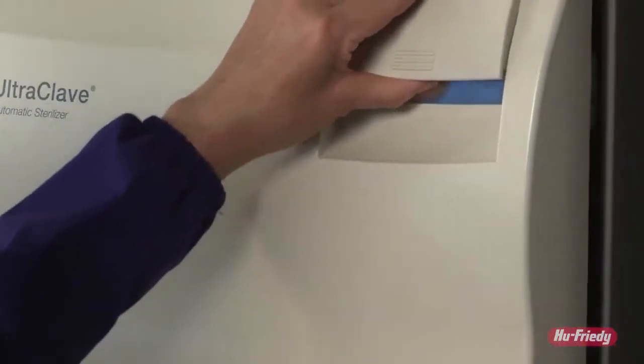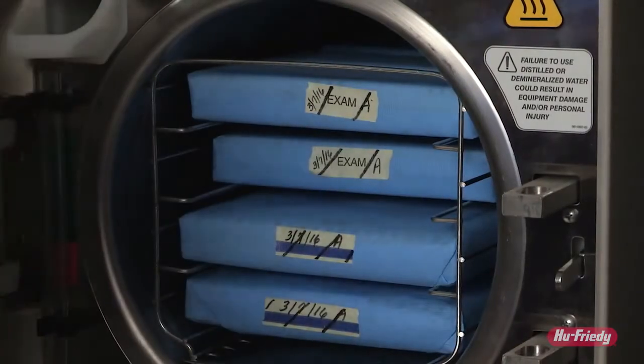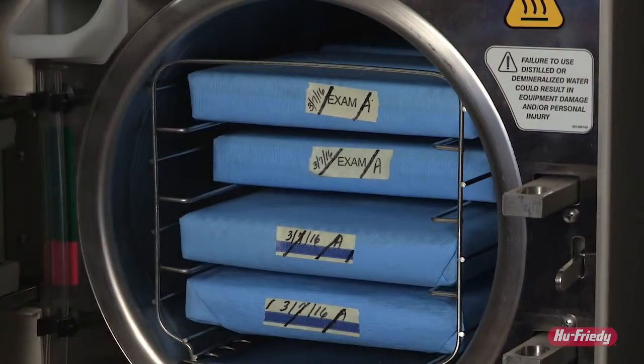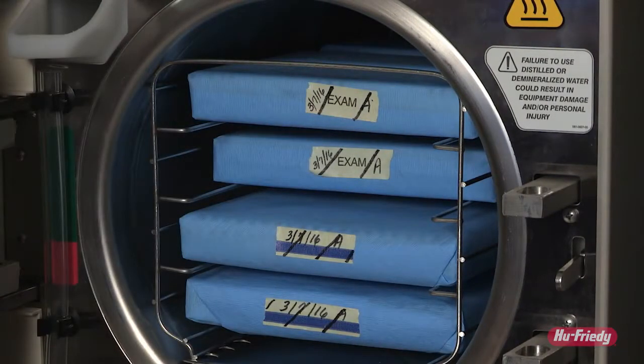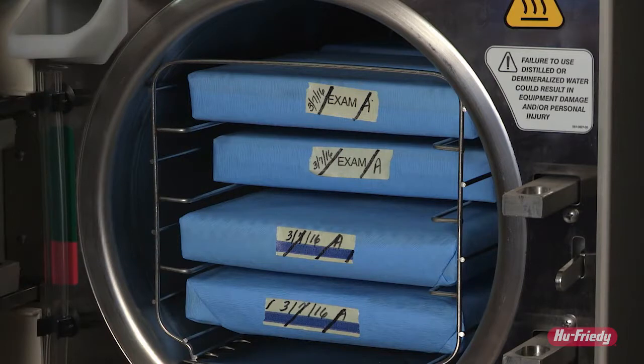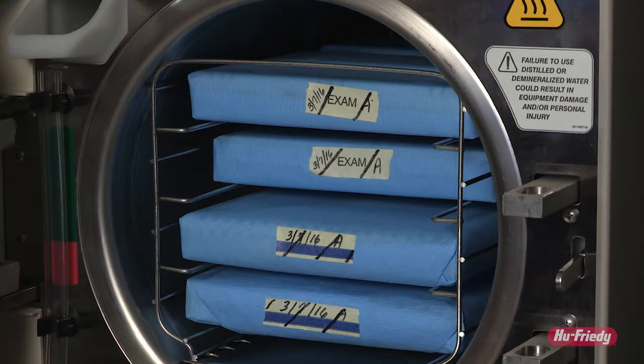Early removal can lead to non-sterile instruments that are still wet, which can result in wet packs, cross-contamination, or instrument corrosion, and can put patients at risk.